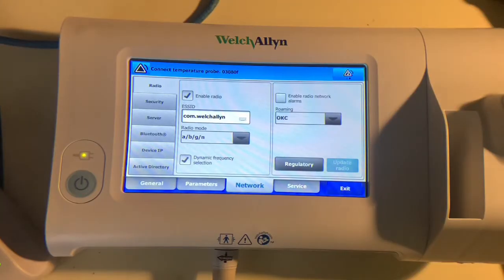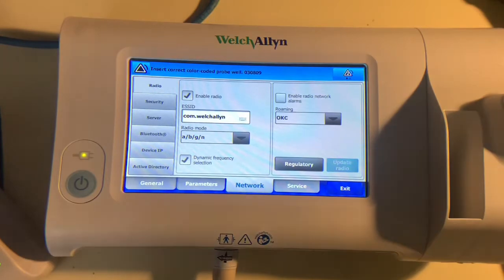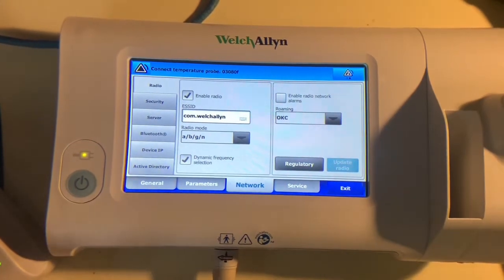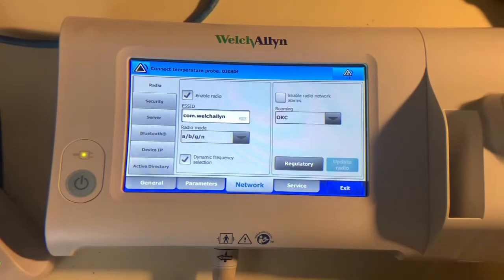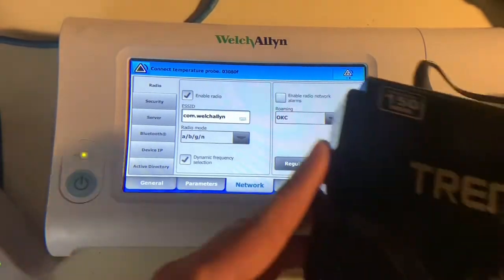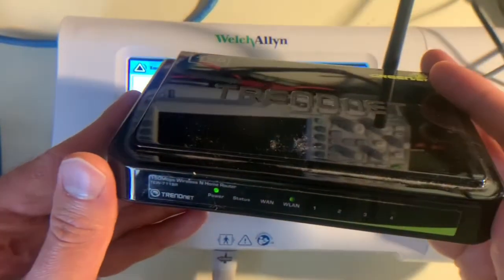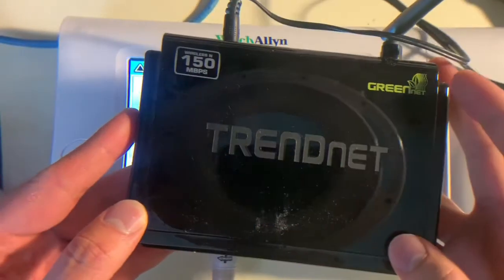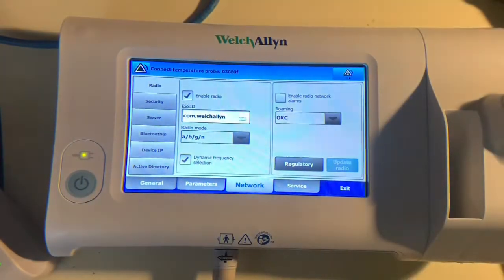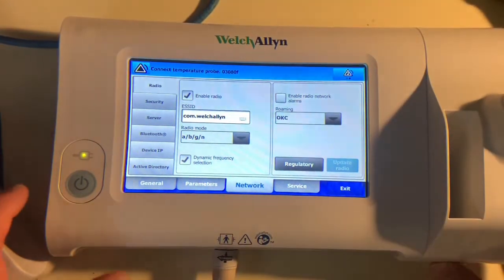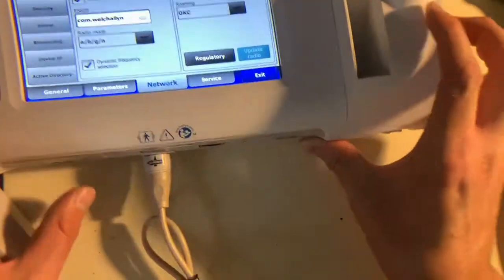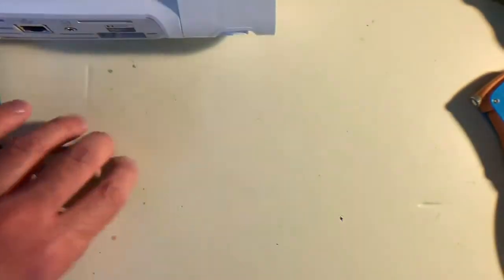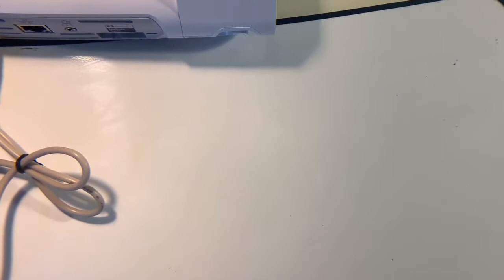And it's also sending some traffic on its new address as well. So now that I showed you the ethernet way of connecting this, not including any kind of security protocols that may be in place, I will show you also the WiFi version of this. And with WiFi it's a bit more tricky. So for this I will put this aside for right now, go to a whiteboard and try and explain a little bit about WiFi and why it's a bit more complicated to deal with than ethernet.